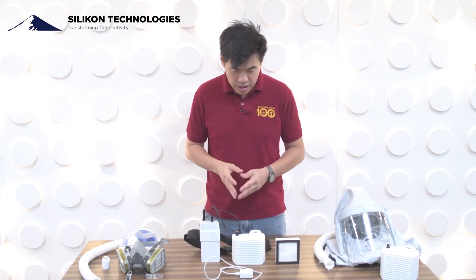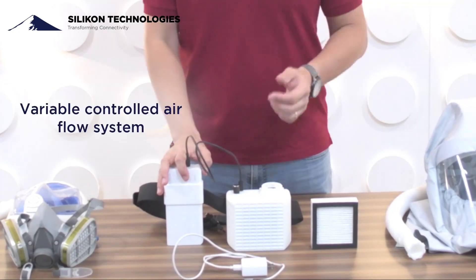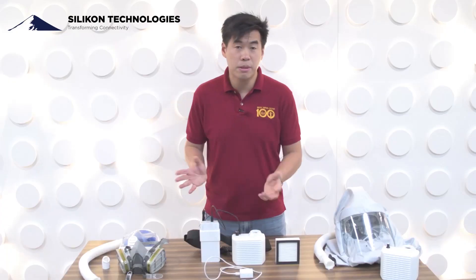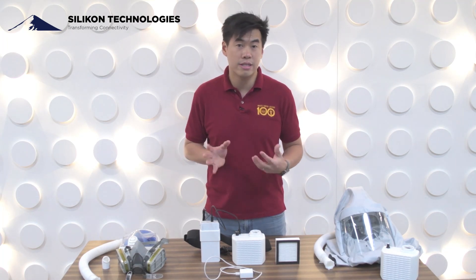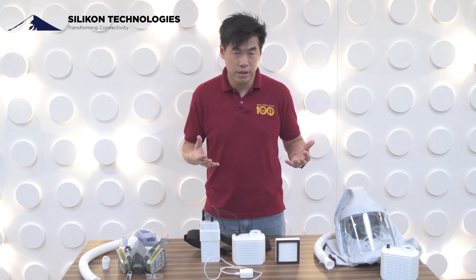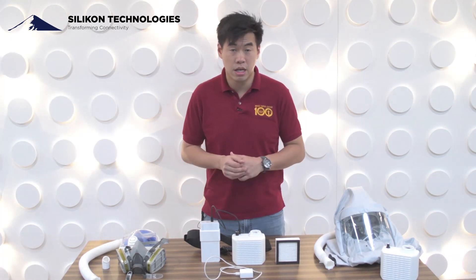So here we are — this is our air pump. It is a variable controlled airflow system that can reach up to 400 liters per minute. Just to give you some perspective, the typical requirement for a proper respirator system is 170 liters per minute, but we wanted to exceed that so we can use it for different capabilities: either a hood or a half-mask full-mask option.